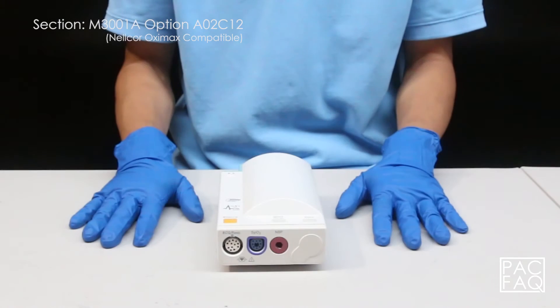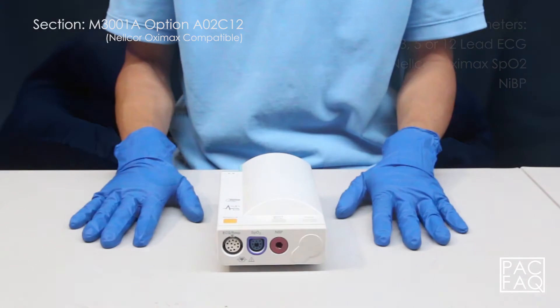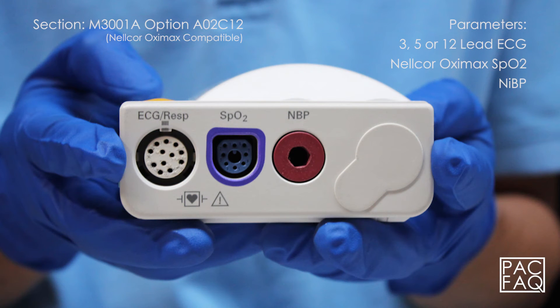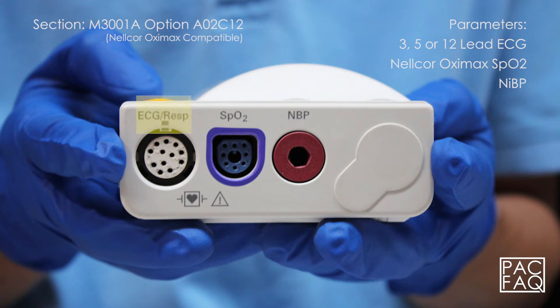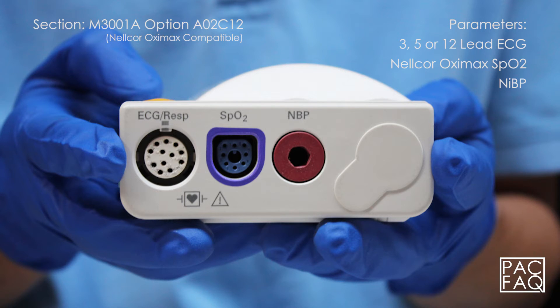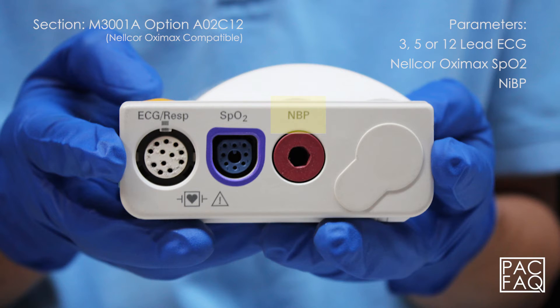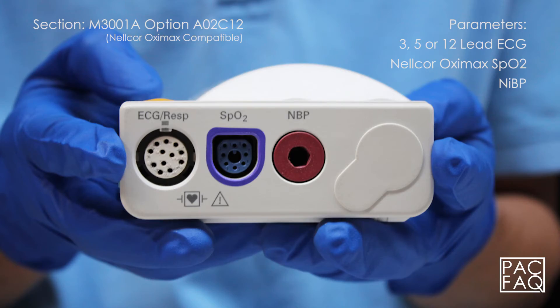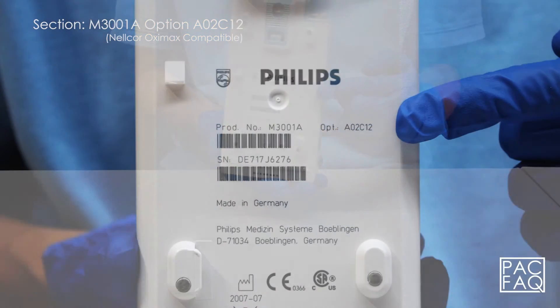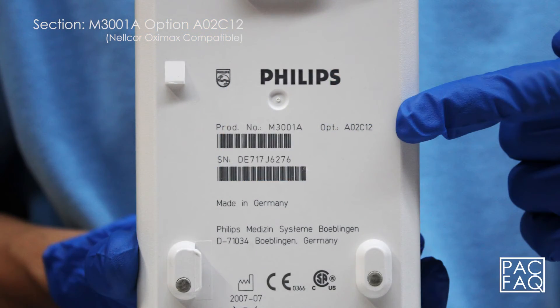Here we have option A02 C12. This unit comes with parameters 3, 5, or 12 lead ECG, Nellcor OxyMax SPO2, and non-invasive blood pressure. The product identification and serial numbers are located on the bottom of the unit.